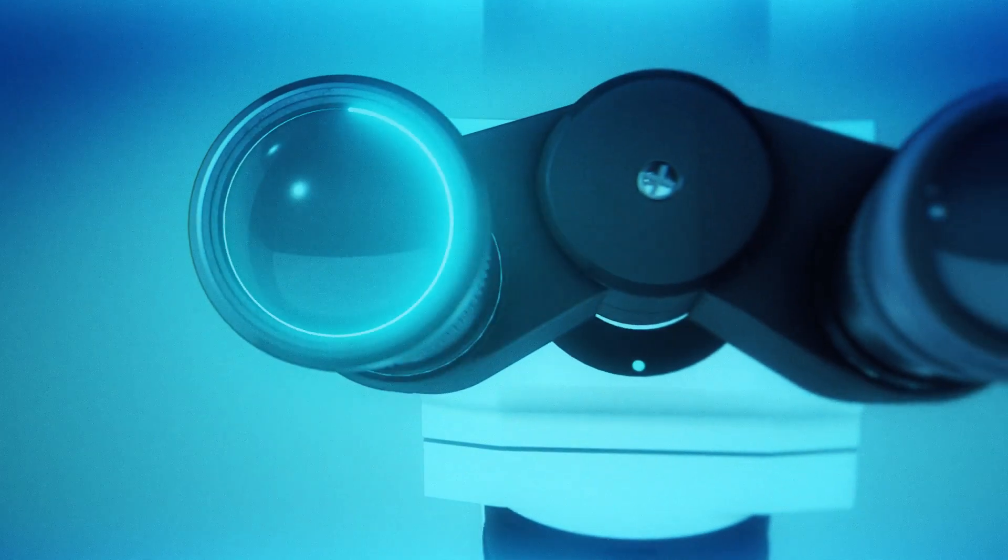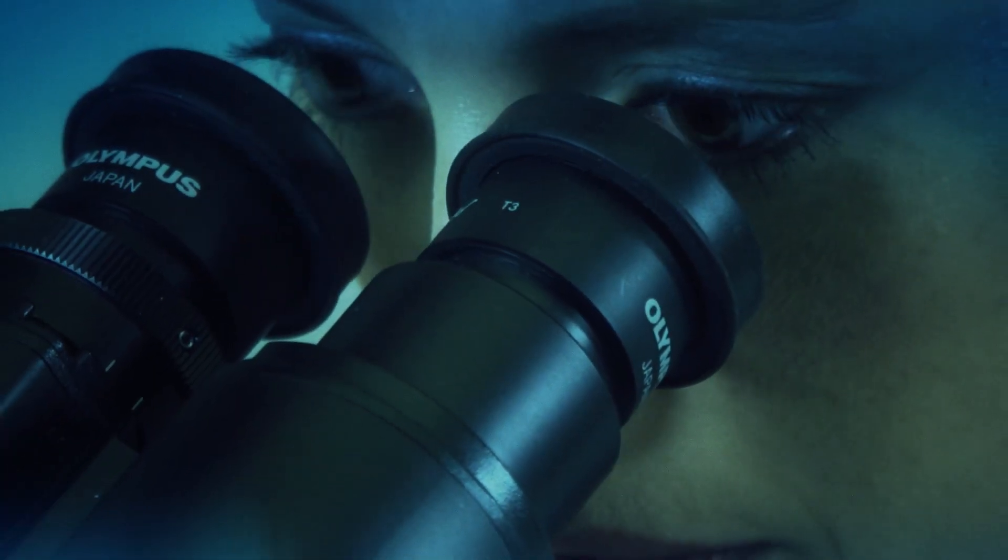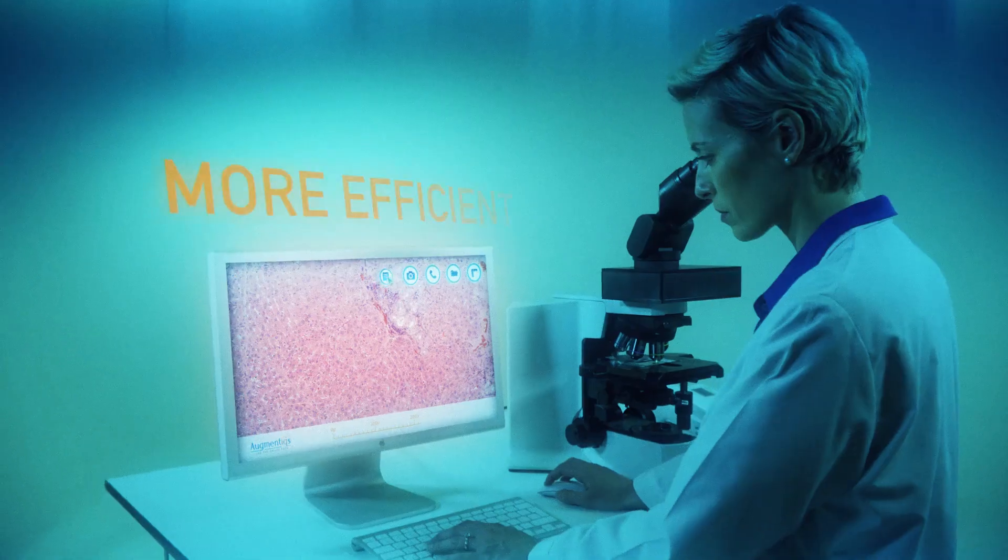The future of pathology is in your microscope. Imagine working with a microscope that's faster, smarter, more efficient.